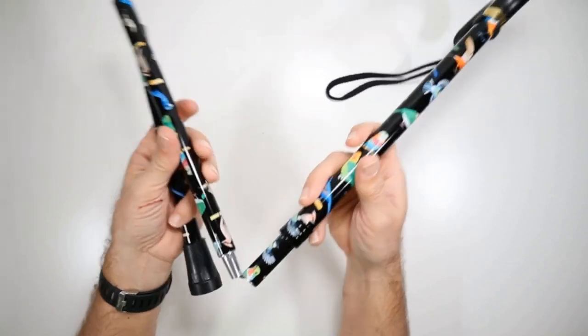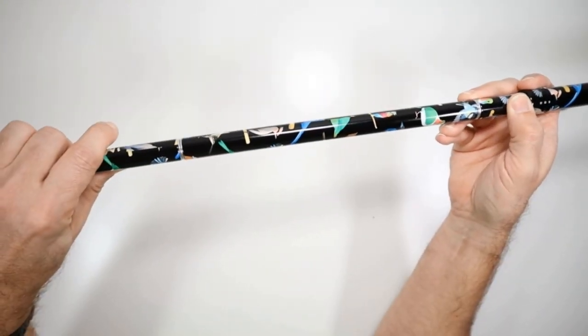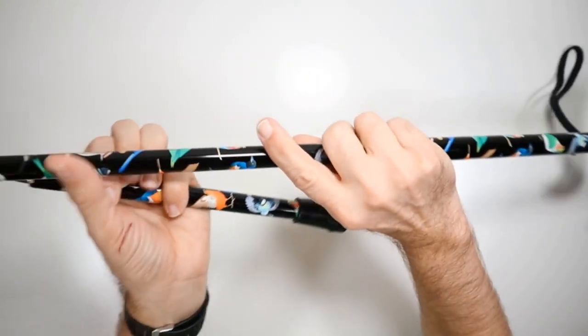Folding and unfolding mechanism, I want to show you that up close. It's just as simple as that. Pops it in and out. When you're ready to disassemble it, just pull it out like this, fold it.